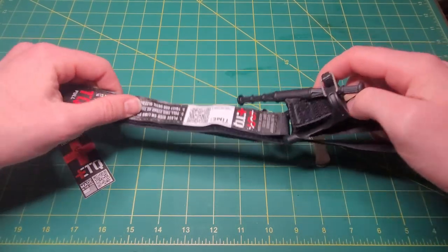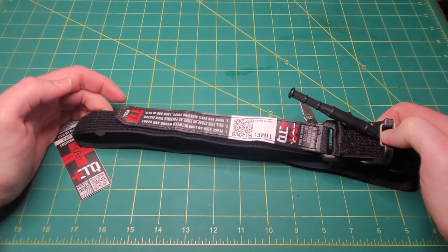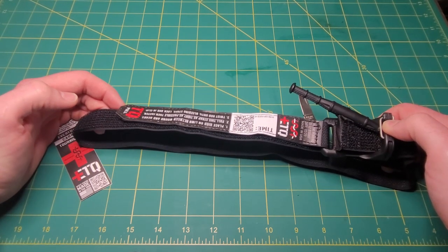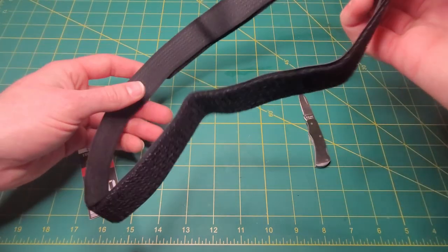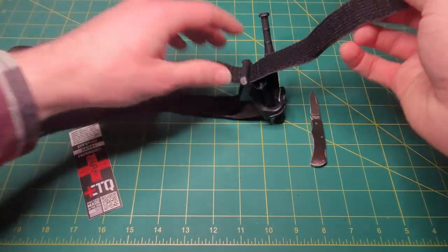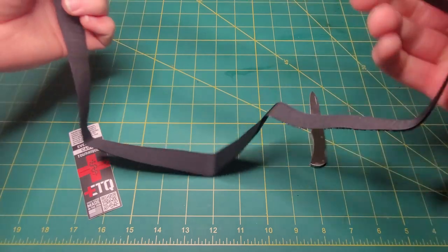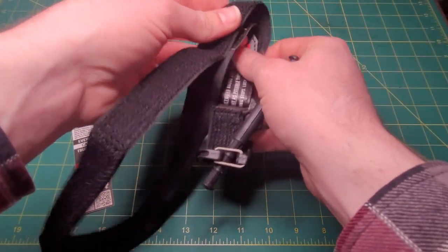The design and purpose of this is to have it as an everyday carry solution for a tourniquet. Compared to other solutions, this is a lot more manageable and compact — that's what they market. Just playing around with it right now and looking at it as it came from the factory, I can see that it is very compact and very everyday carry friendly.